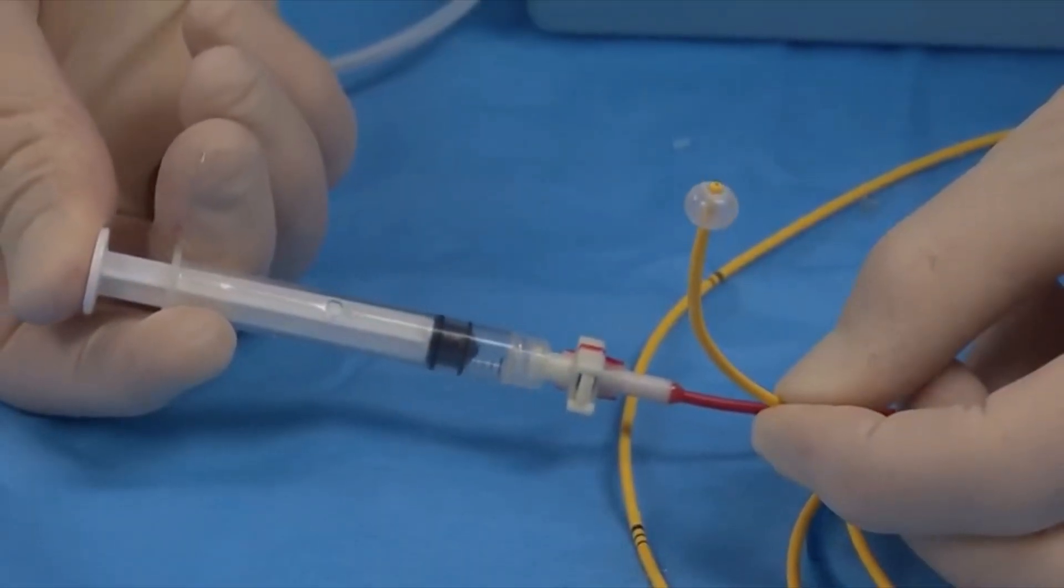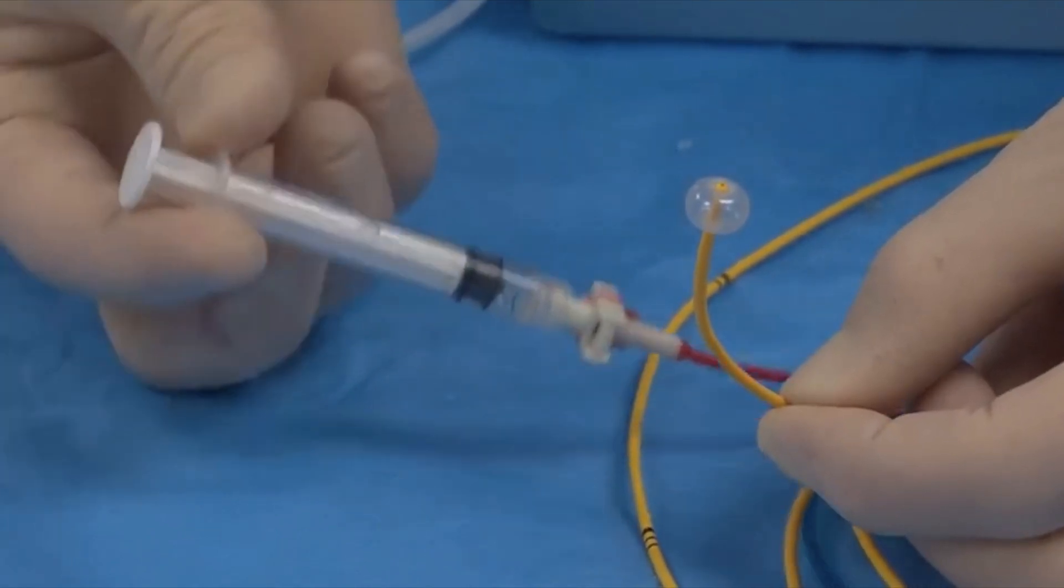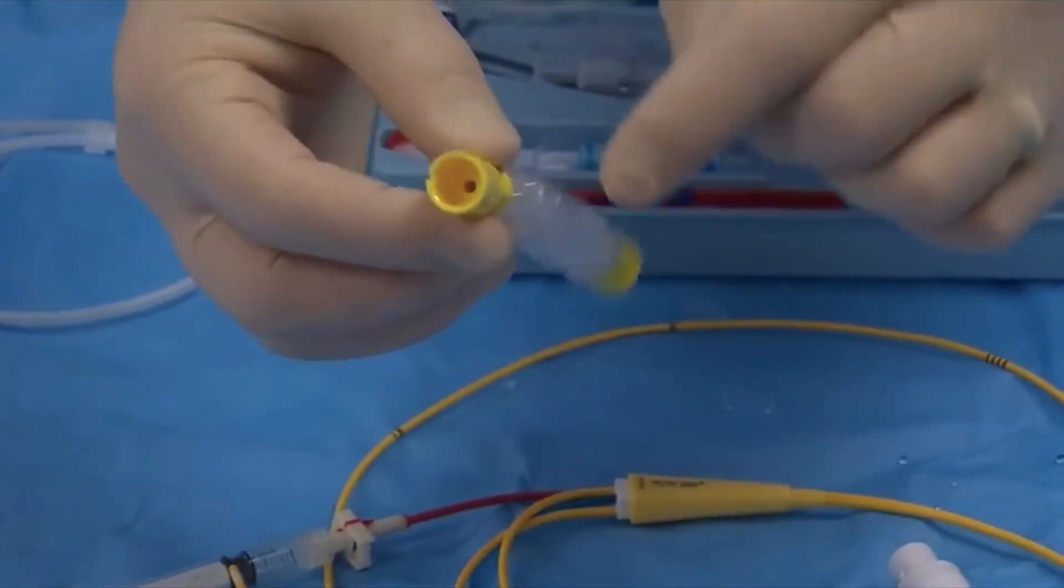It was introduced by Dr. Swan and Dr. Ganz. They then named their invention Swan-Ganz catheter.